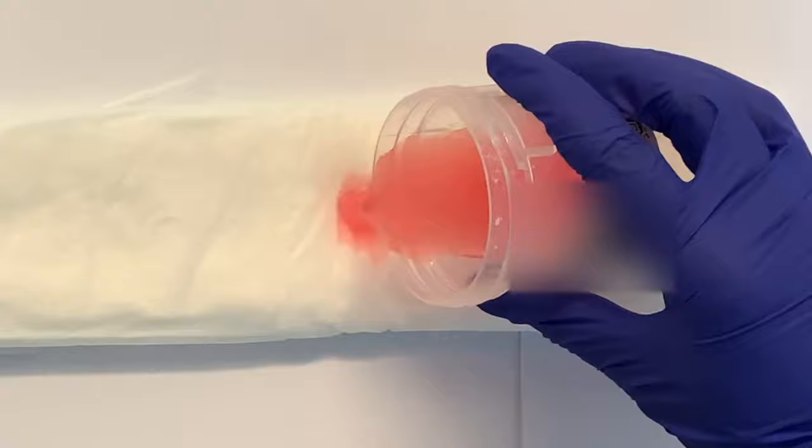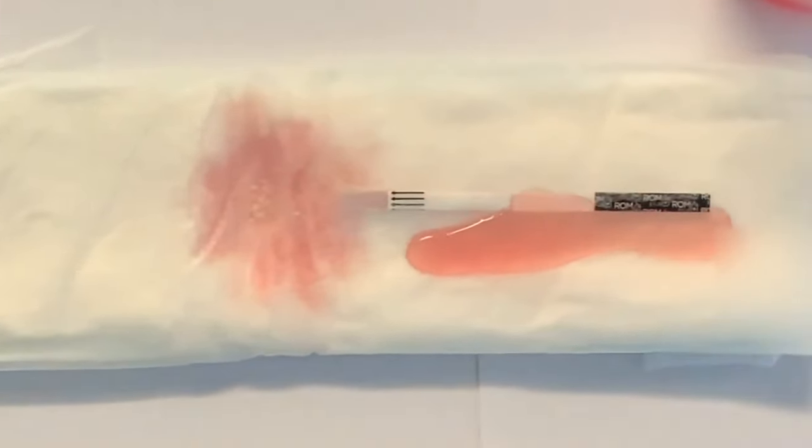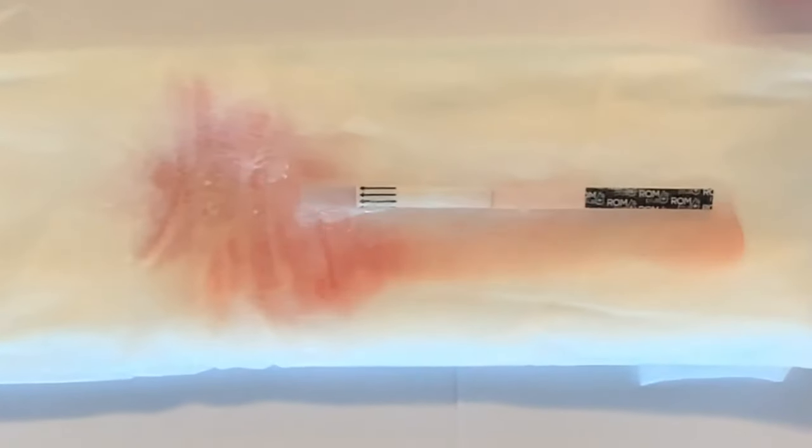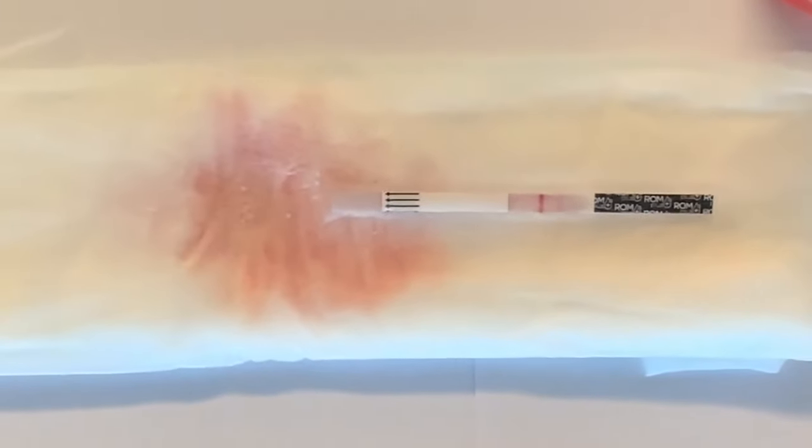Here, we demonstrate the absorption of amniotic fluid on the pad. As you can see, the strip reacts with the liquid. The liquid will absorb in the strip from left to right within a few minutes.